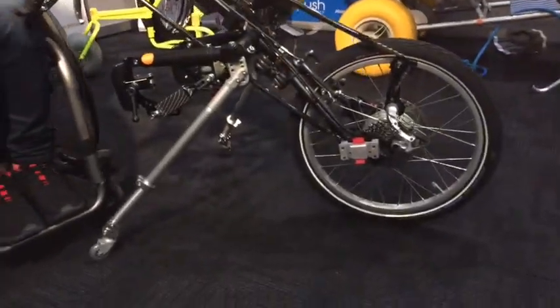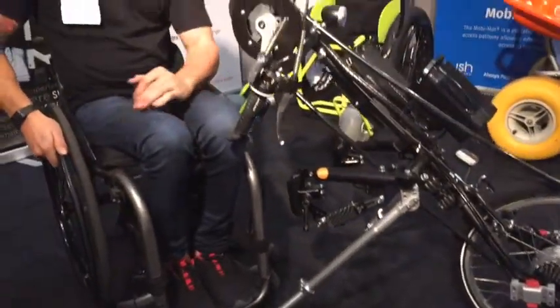These things are great. They attach to any manual wheelchair. One of the really good things about it is being able to attach to any chair and not having to use any additional mounting hardware, which is something that we think is a really great feature of these.